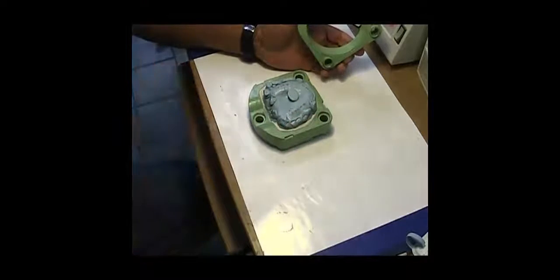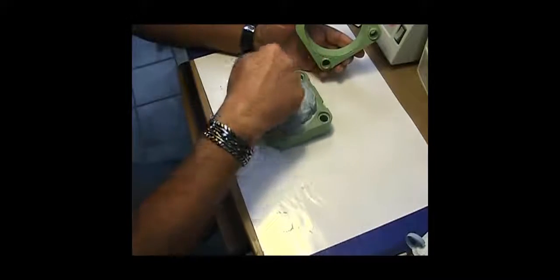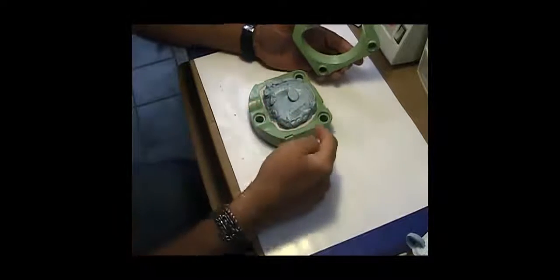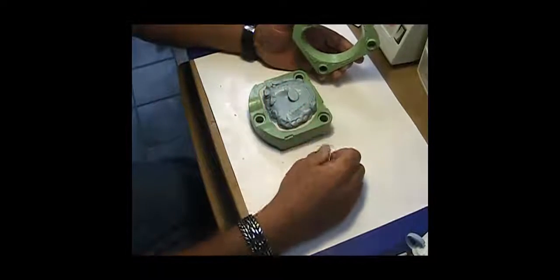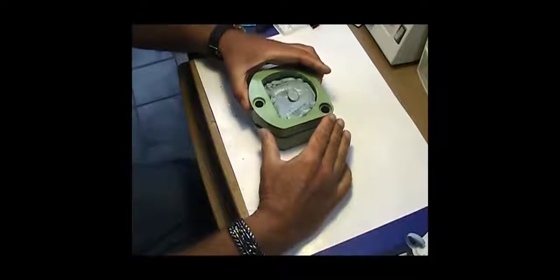You'll notice I have little balls of leftover putty placed on there. I also poked a few holes in and around for retention so the putty doesn't pull out of the stone I'm going to pour on the upper half of the cap.